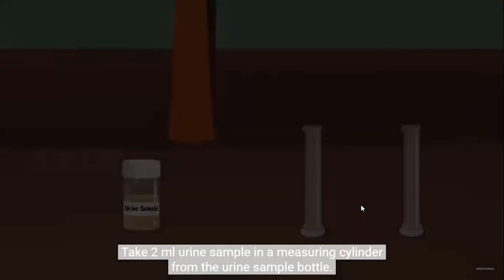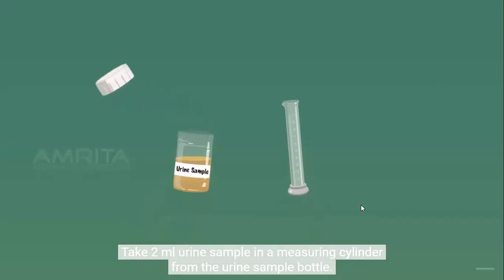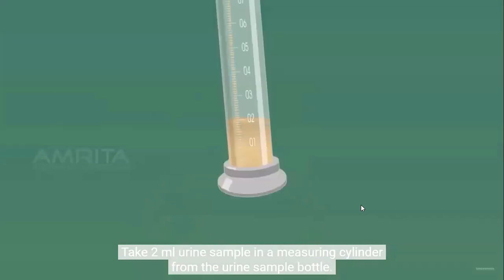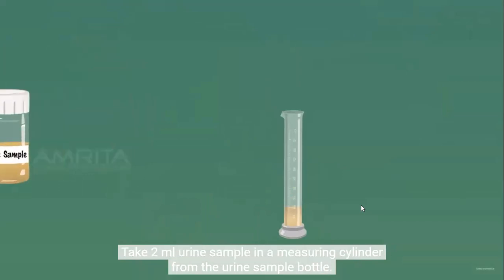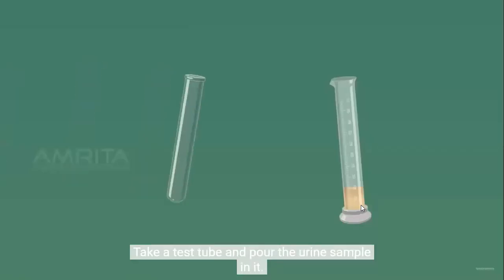Procedure: take 2 ml urine sample in a measuring cylinder from the urine sample bottle. Take a test tube and pour the urine sample in it.